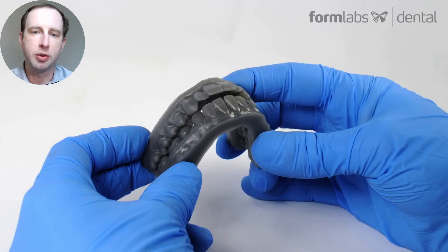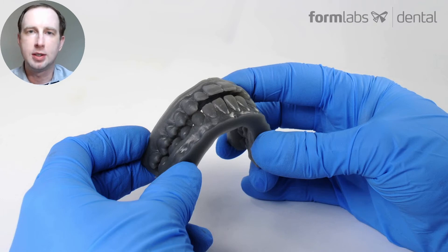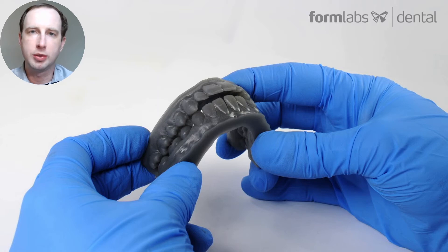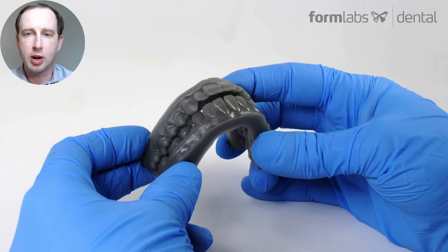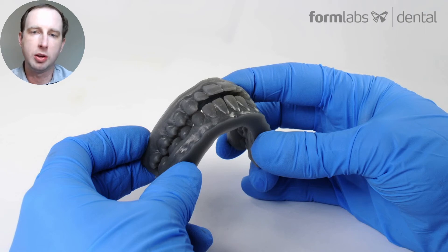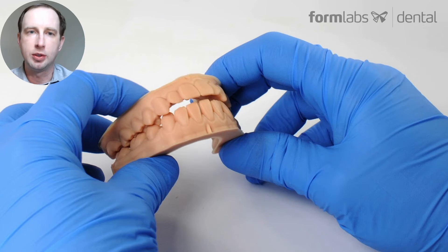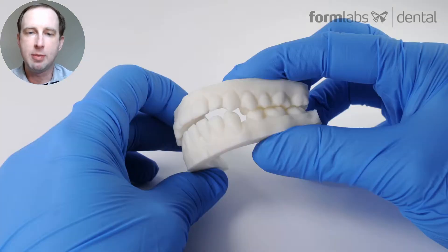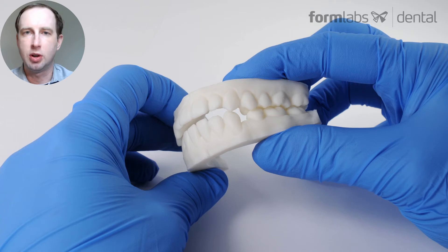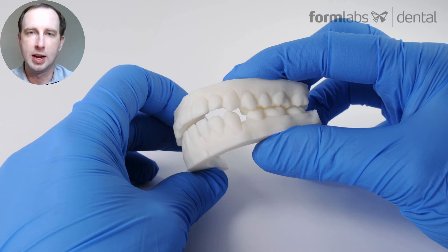These replica models are great for thermoforming appliances like clear retainers, mouth guards, holding trays, or even traditionally fabricated orthodontic appliances like Hawley retainers. They're great for study models and diagnostic models, and patient presentation parts as well. It's always easier to talk about a case and the treatment plan if you have a physical part in hand.